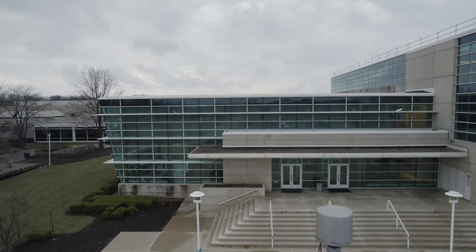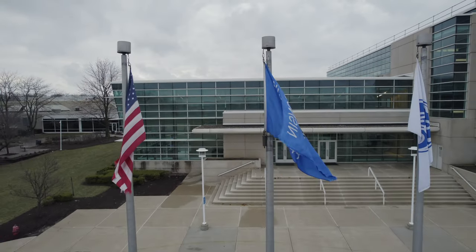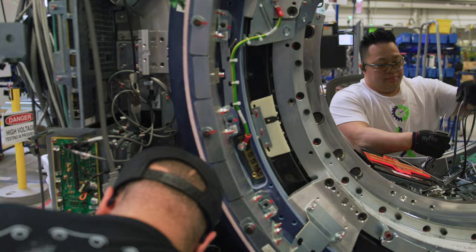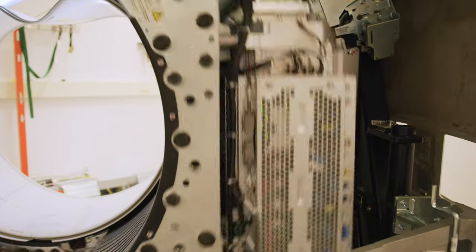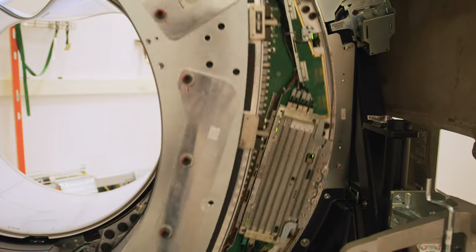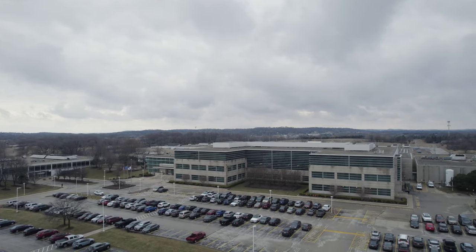As is clear, healthcare is ultimately personal, and the motivations for advancing it should be too. Whether it's developing new innovation, running clinical evaluations, or working to bring new capabilities like photon counting CT to hospitals all around the world, there is a myriad of time, energy, and resource that goes into developing these new technologies. There's also a lot going on under the hood to bring photon counting CT with deep silicon to market, and it's that along with another personal story that's coming up next.